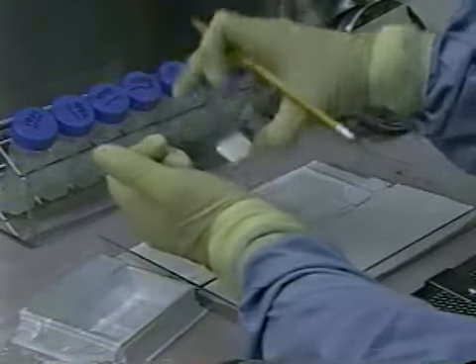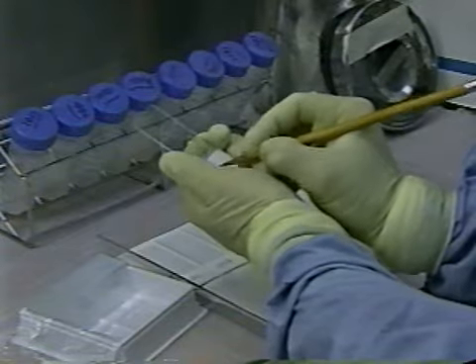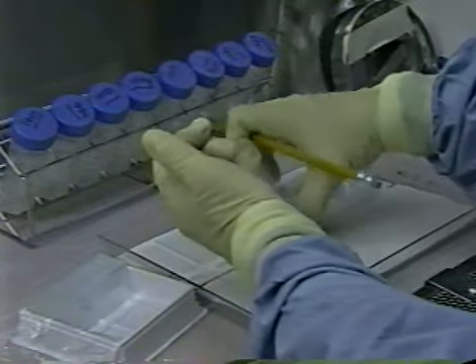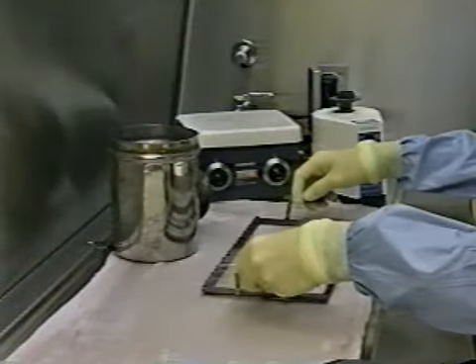Throughout the testing process, it's critical that the test results are linked to the identity of the patient and to other tests being performed on the same specimen. Events in this scene were done correctly.